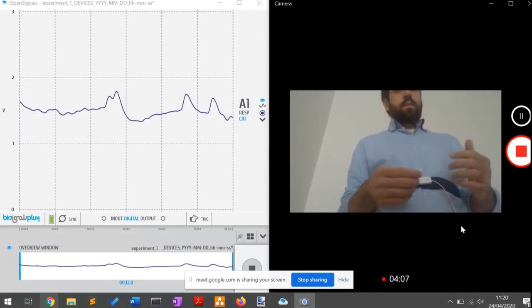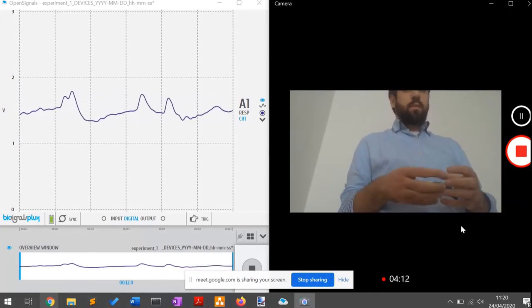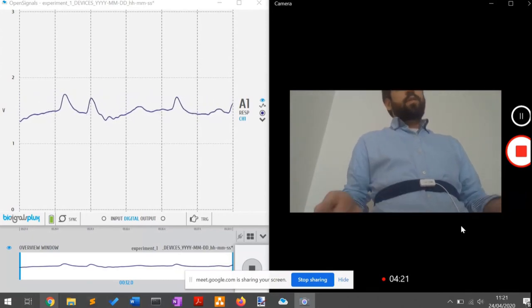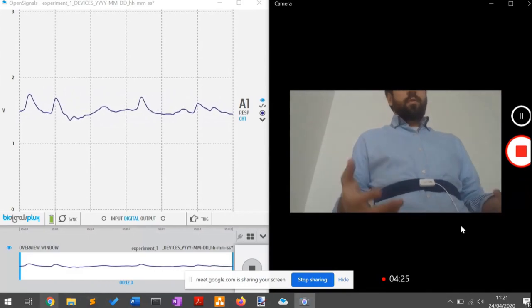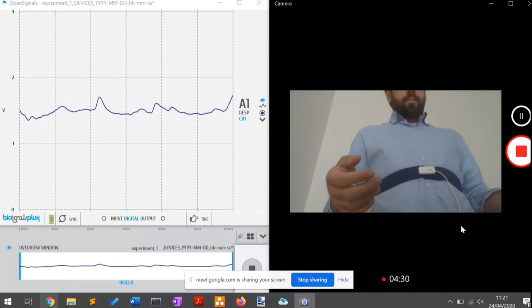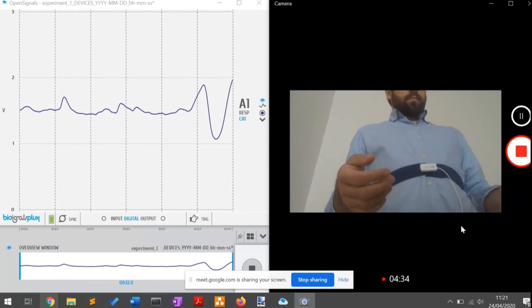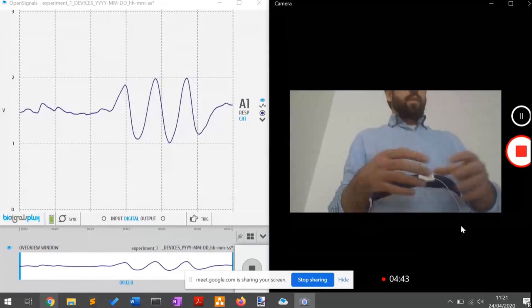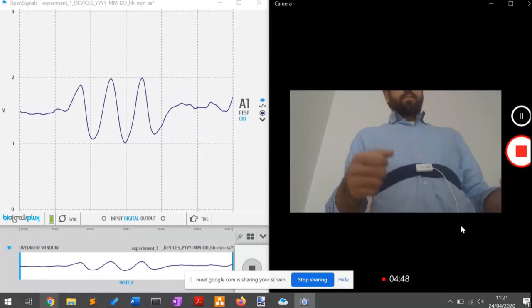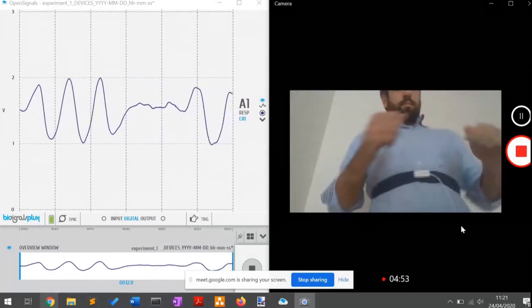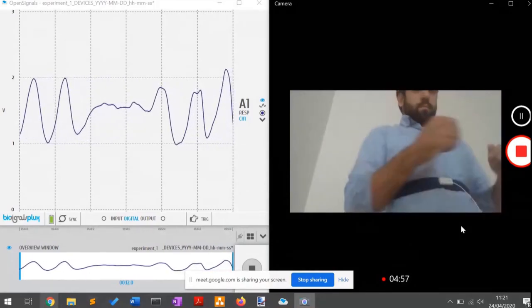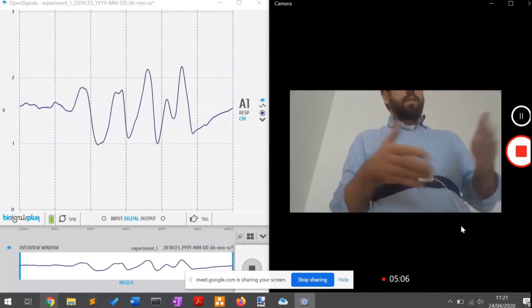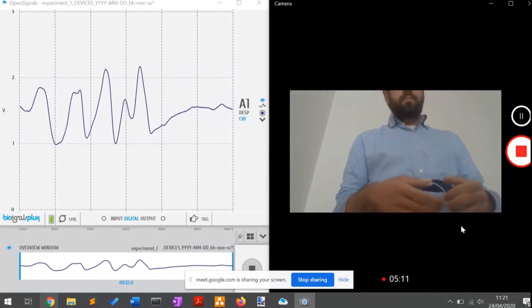What's more interesting is an example of motion artifacts. The sensor is used a lot in biomechanics applications, and movement during biomechanic applications can actually distort the signals — specifically by rotation of the upper body. If I do deep breathing and then move my body, you see that there are some changes in the peaks, valleys, and the sections in between. We can clean them with some signal filtering techniques, so there are possibilities.